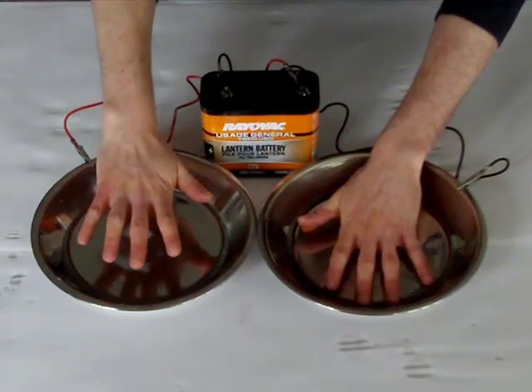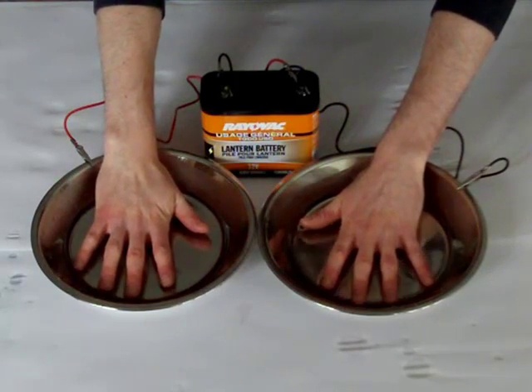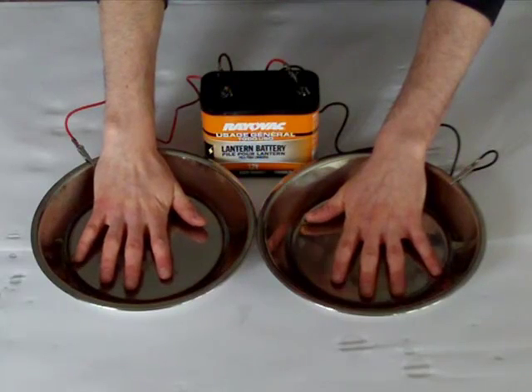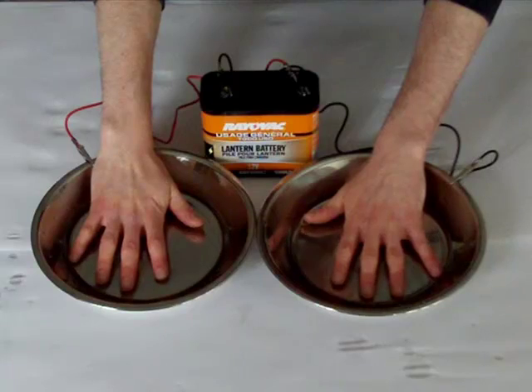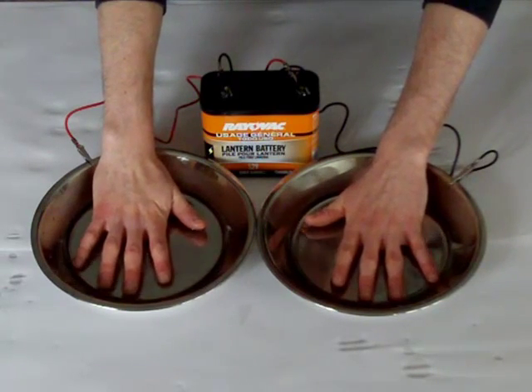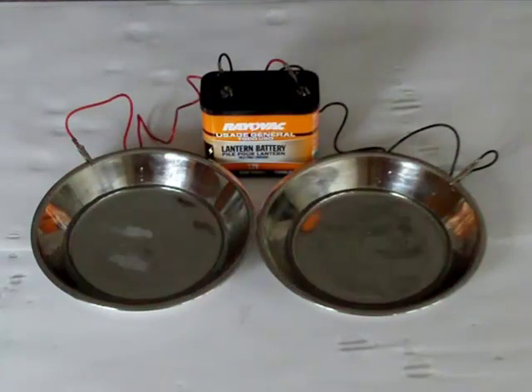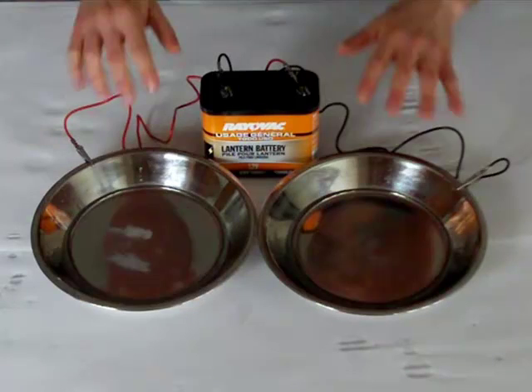You want to perform this procedure for five consecutive days, and you're going to get fantastic results by the fifth day. After the first couple of days, your hands will start to feel smoother in the morning. The dryness will last longer into the afternoon with each consecutive session. Generally, in 10 to 14 days you'll experience the full effect of drier hands or feet. After that, the rest is just maintenance. I perform iontophoresis treatments only once every two weeks or so. I've heard from many people who do this once a month — even those whose sweating used to be very chronic — and they can now spread treatments much more intermittently.